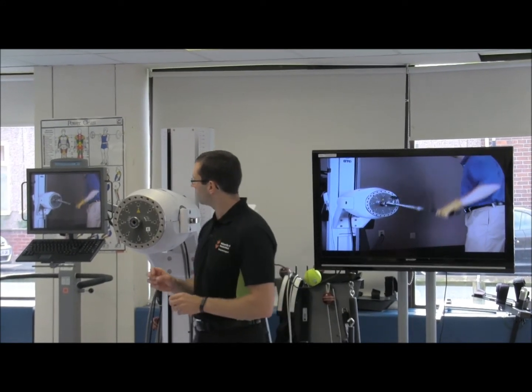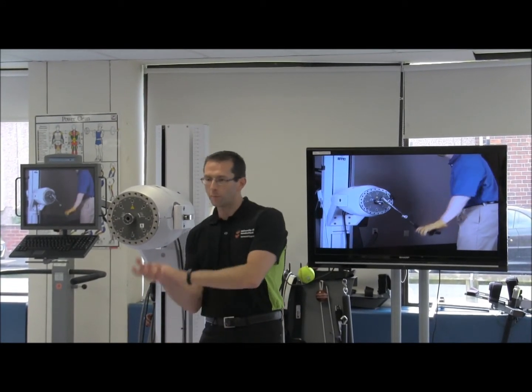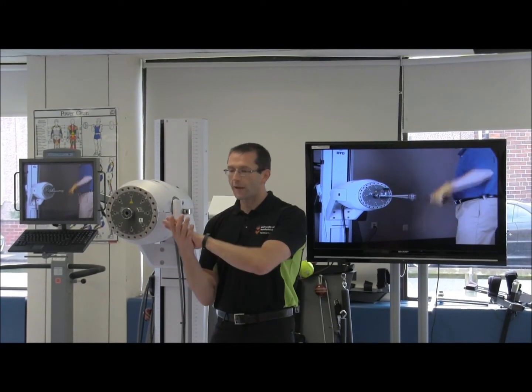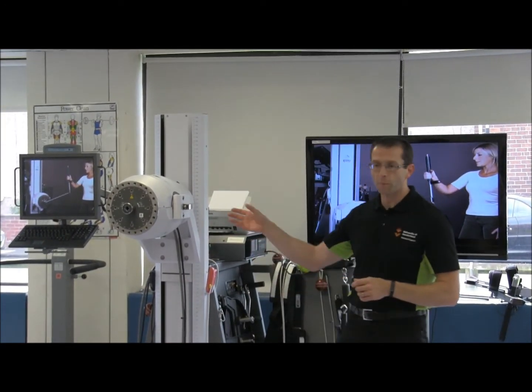For those not familiar with the language we're using here: concentric movement is when I lift a weight up and the muscles shorten — so I'm picking a weight up and lifting it. Eccentrically is when that weight is pushing against me and my muscle lengthens against it. So we're looking at the two modes of operation with this.